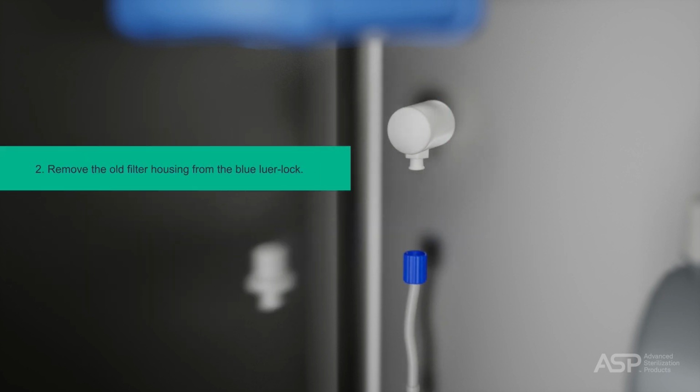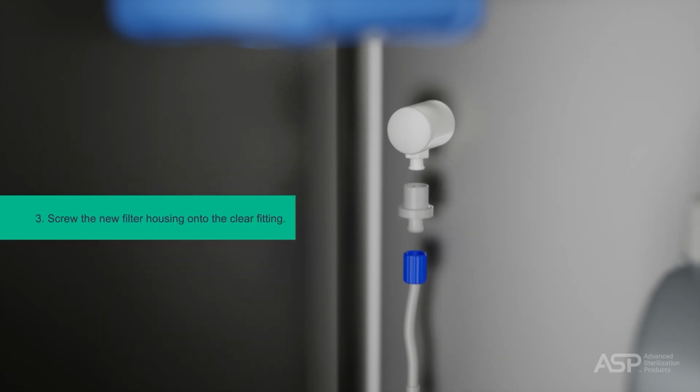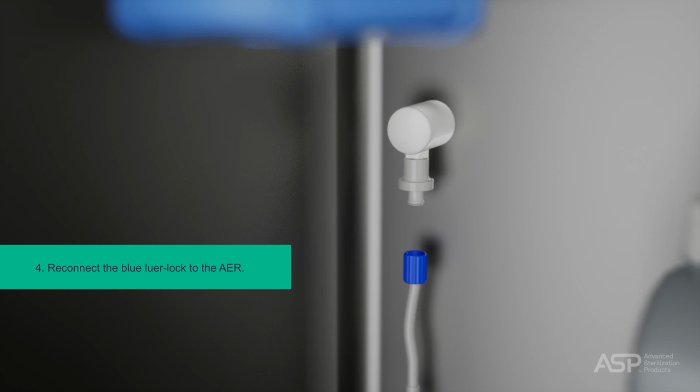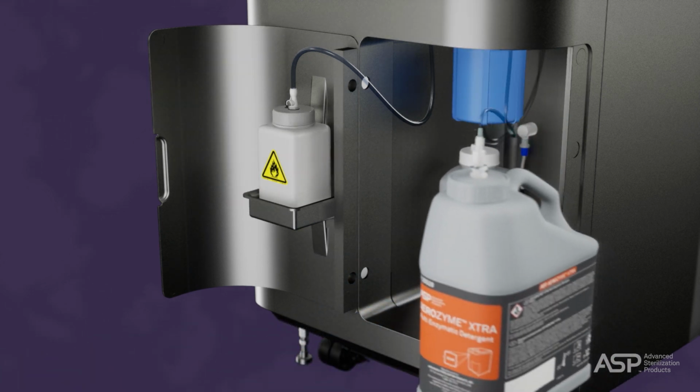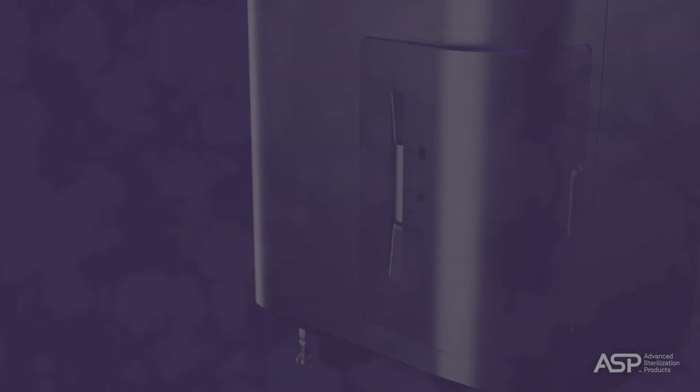Remove the old filter housing from the blue luer lock and screw the new filter housing onto the clear fitting. Next, reconnect the blue luer lock to the AER and feed the extra tubing back into the system. Put the reagent bottle and detergent bottle back to the original position.